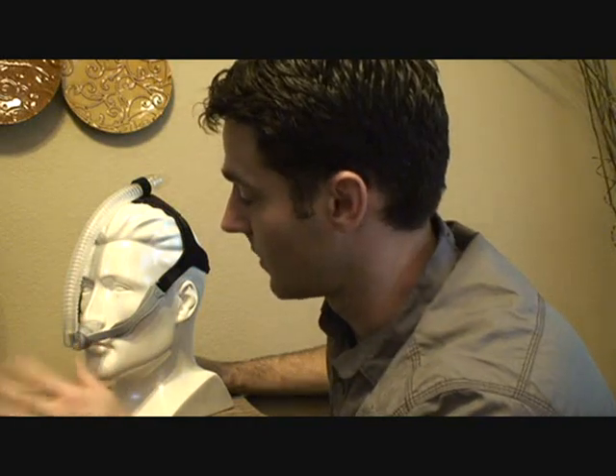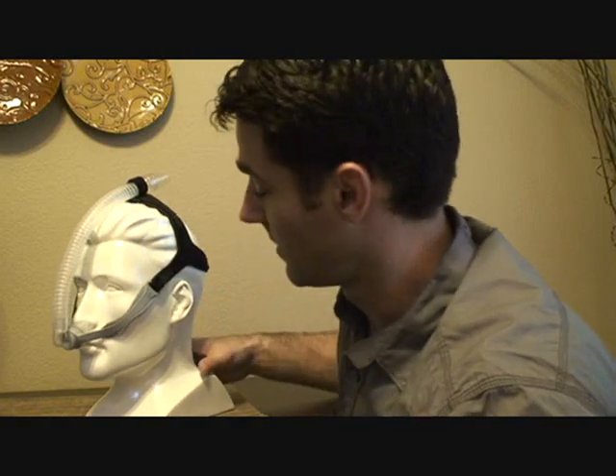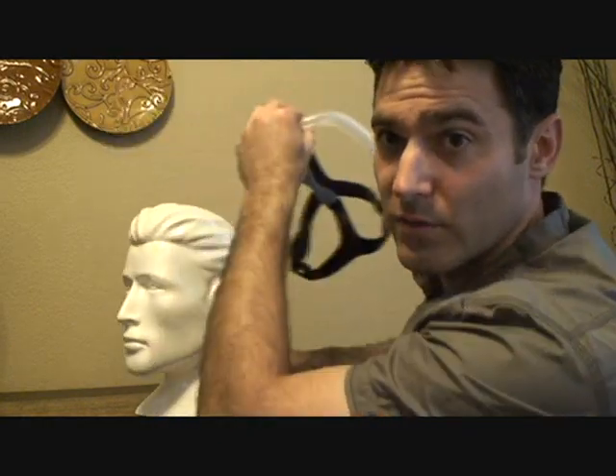It's really hard to get the angle wrong on this because there are no other adjustments, and because this is a ball-and-socket joint it'll kind of find its own right place on its own. To get it off, pull down and then pull back up over your head.